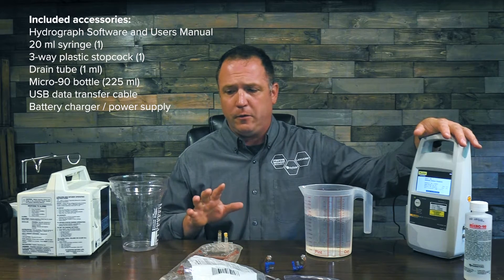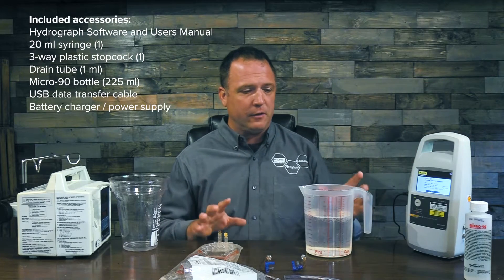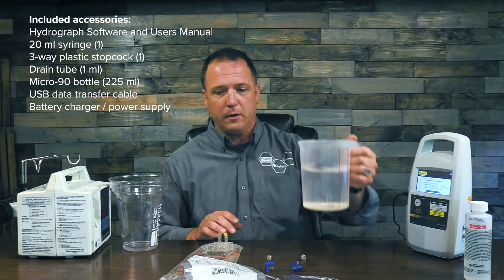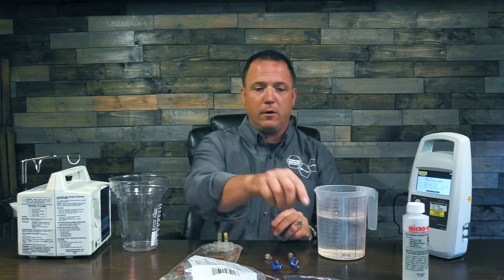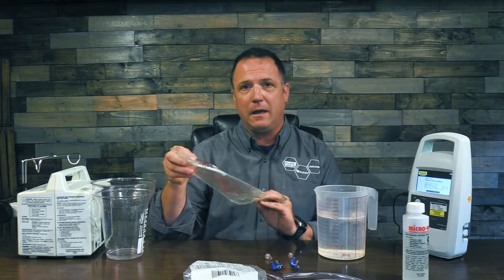Let's get going by talking about the things we're going to need to do this test. On my desk here you're going to see I have a one liter volume of pure distilled water, my bottle of micro 90 solution, two stop cocks — we'll cover why I might want two here later on. Since the IDA1S is a single channel device I need one drain line and a collection canister, and my IV test solution bag.